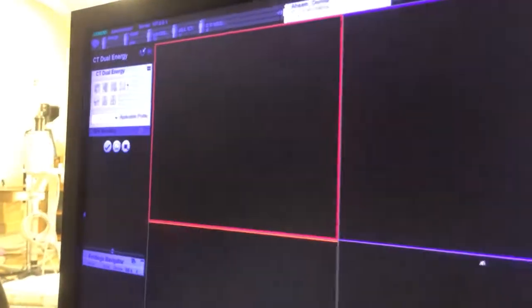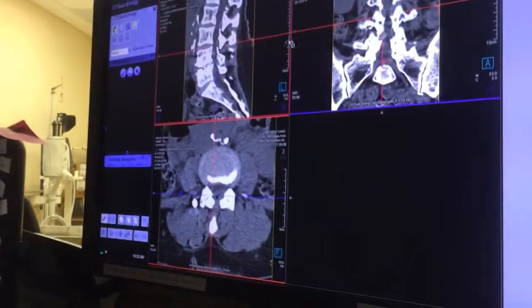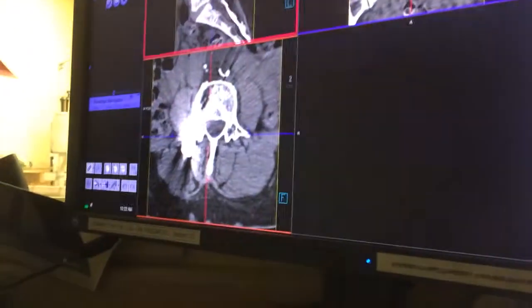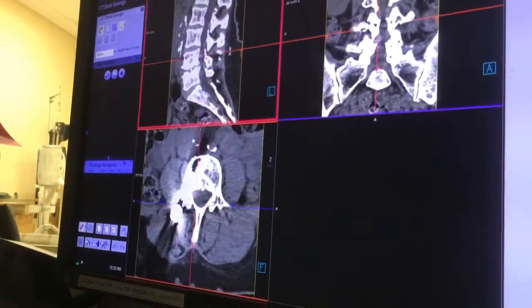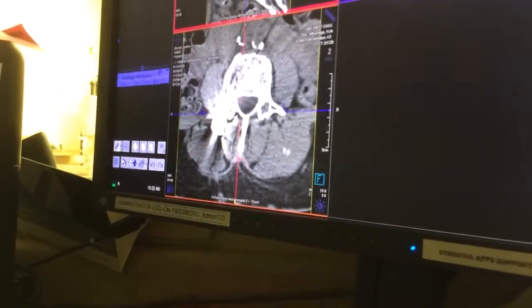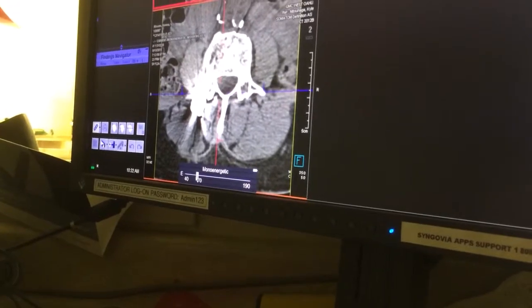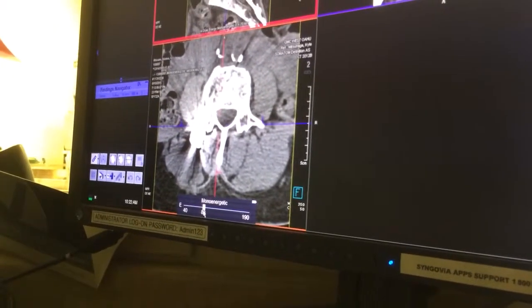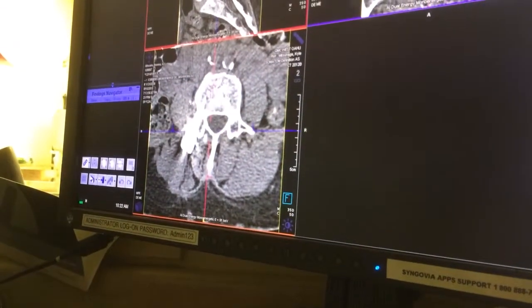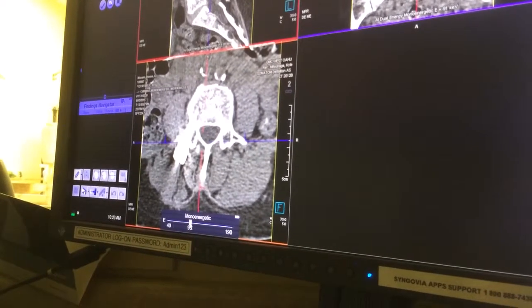So now we're going to find a single keV that looks best. It looks good here because you're not looking where the metal is. But if I drag this down, look at all that metal artifact. So that's a good spot to look at — we're going to find an area that looks bad. Now we come to the bottom of the image and drag this little yellow slider over just a little bit, a little bit higher kV. Look how much it cleaned that up — much better. It's not perfect, but it's much better than it was.